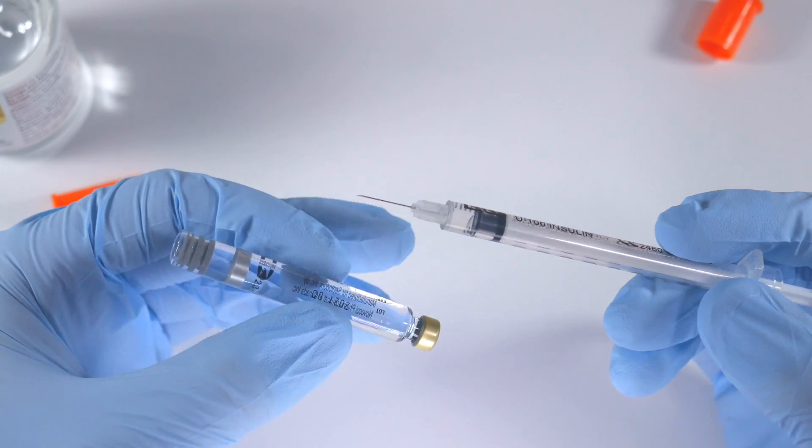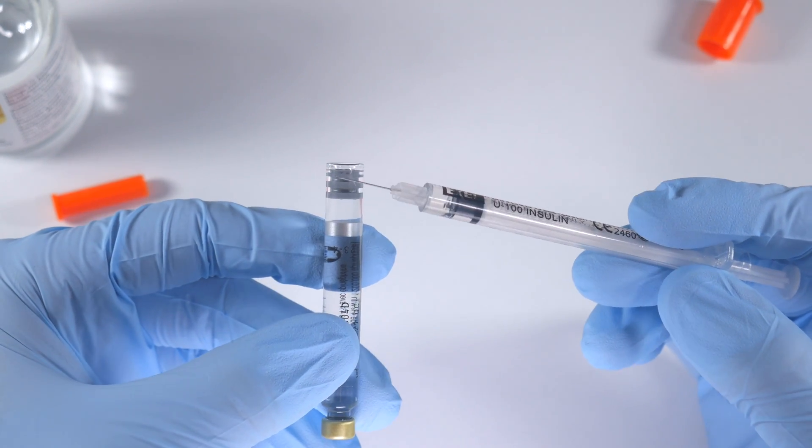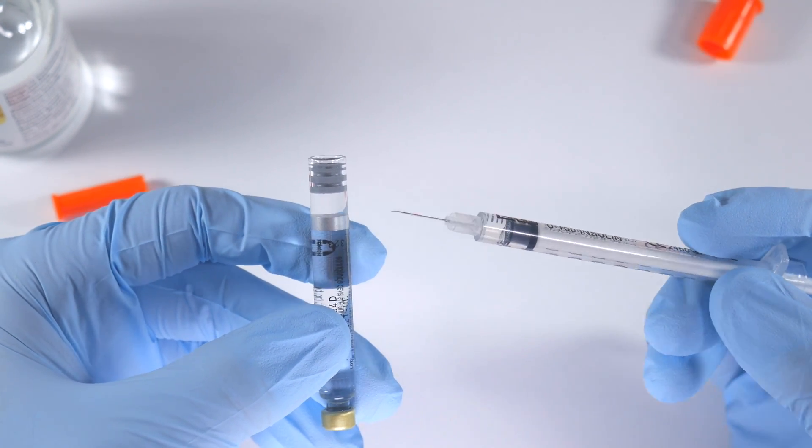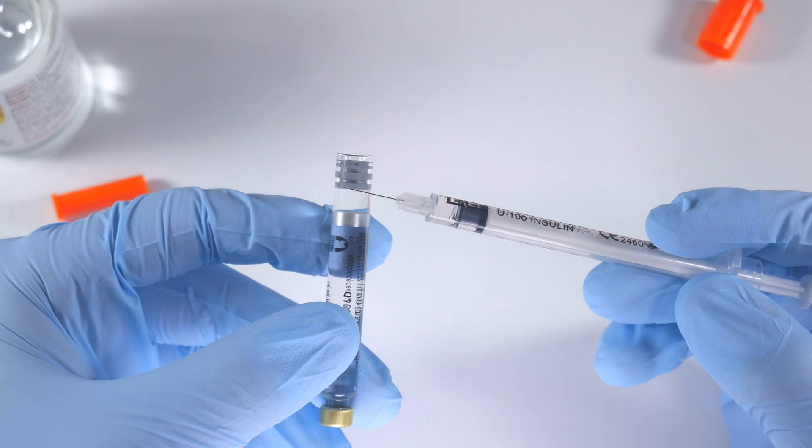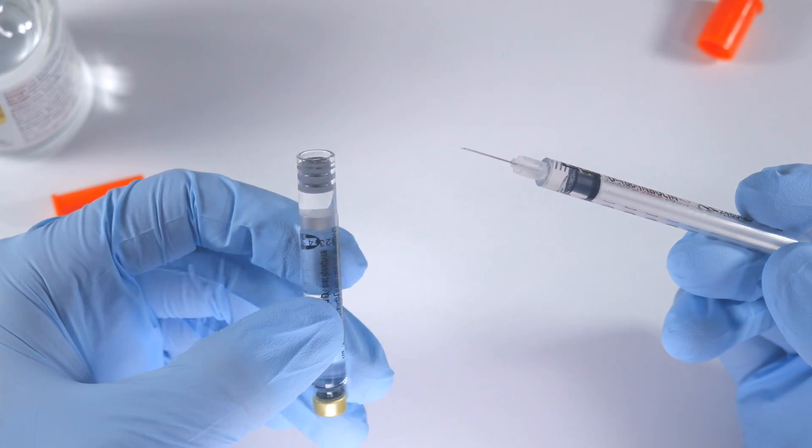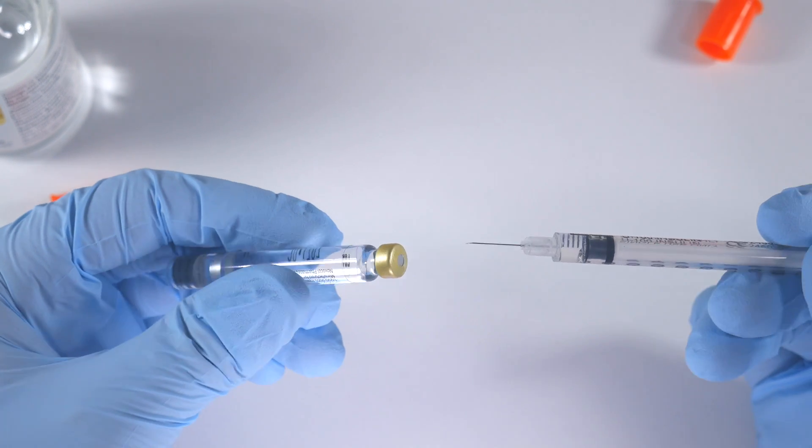So you're going to observe as we're putting this in that the stopper is going to move out. You want to do it kind of slowly so you don't push too fast and blow this out the end. Now you probably won't - I've tried pushing pretty hard on these and it will pop out a little bit, but generally they'll stay in place.